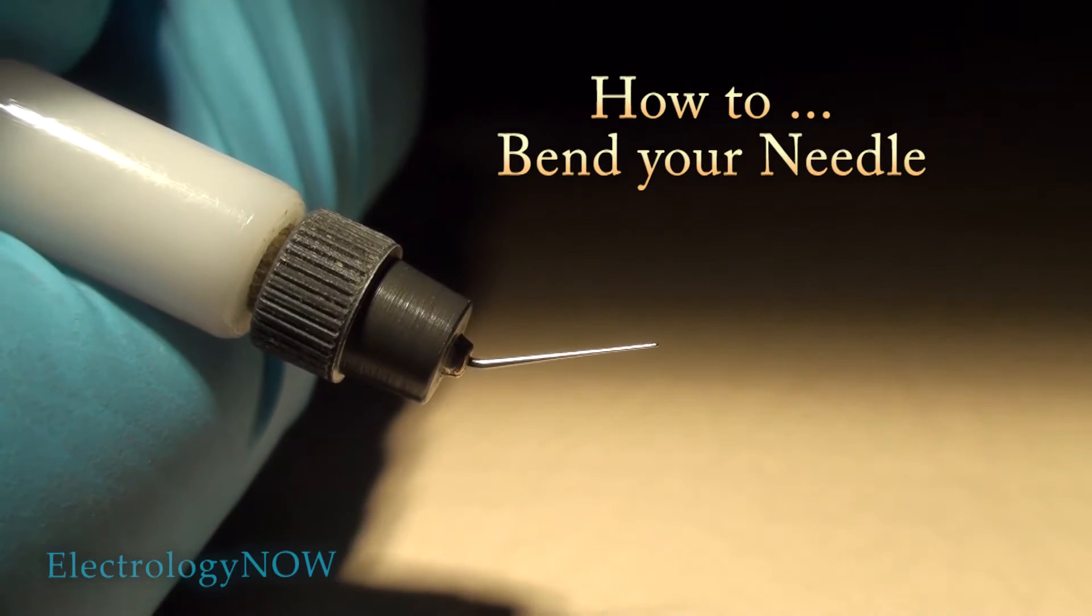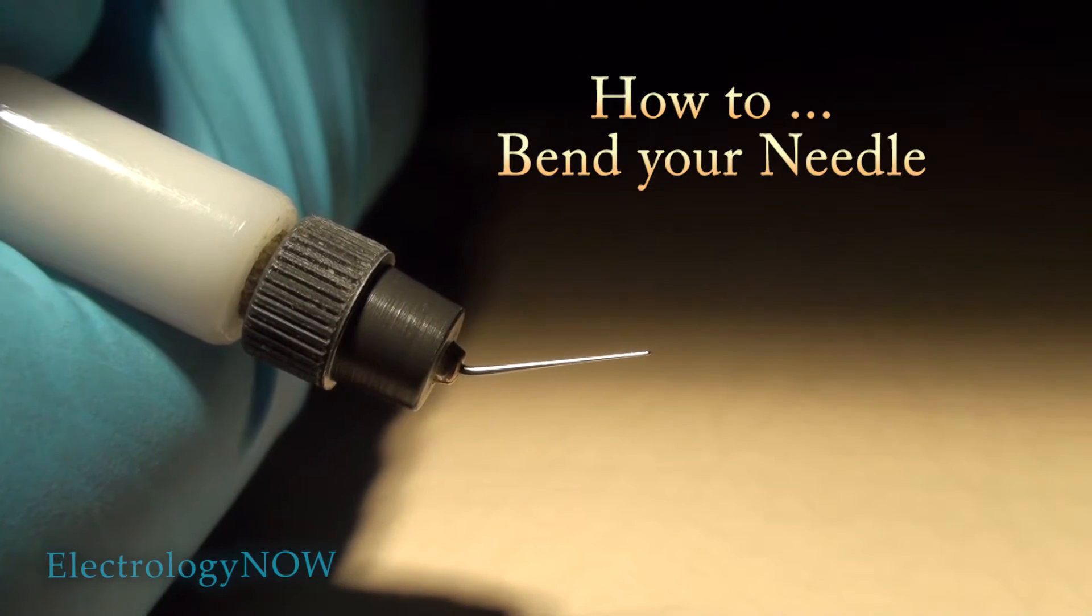Several people have asked me to more clearly show how to bend your needle, so here goes.